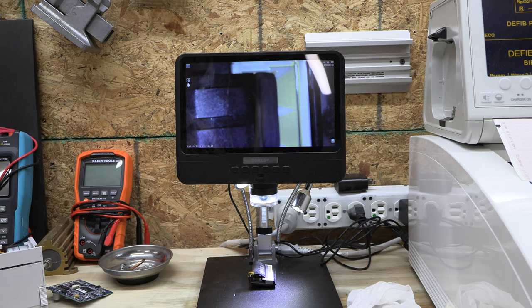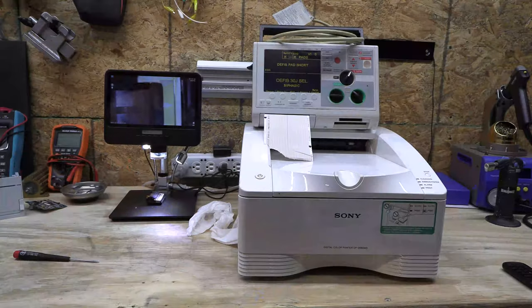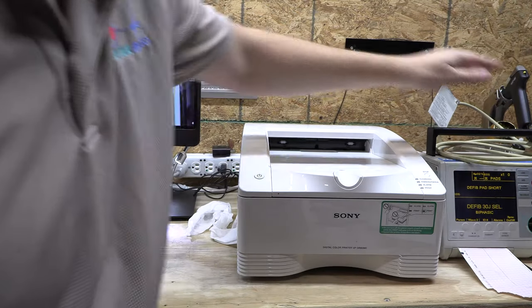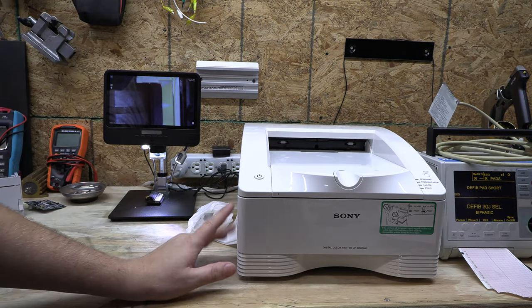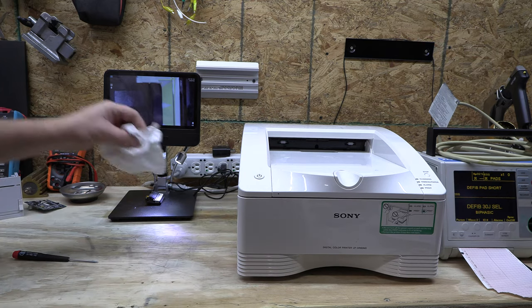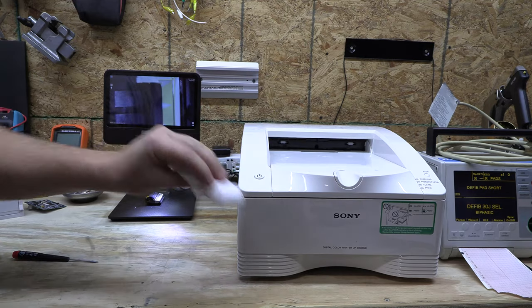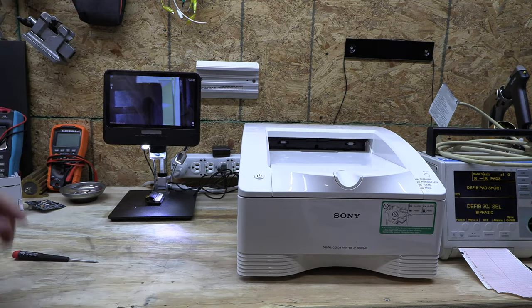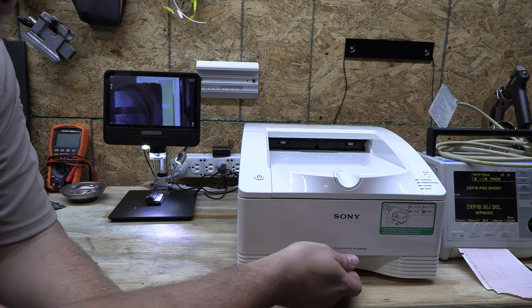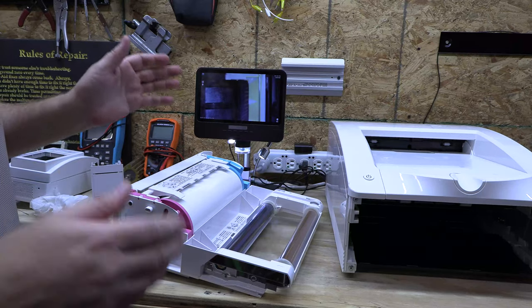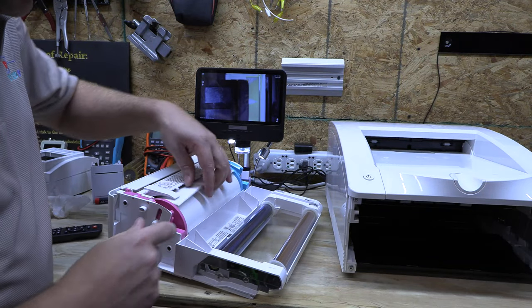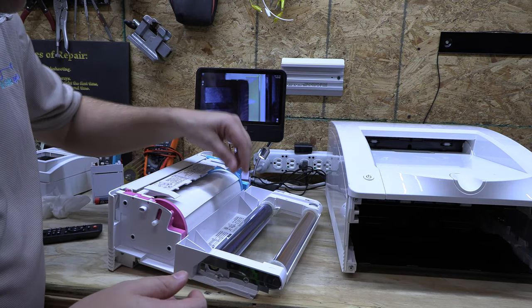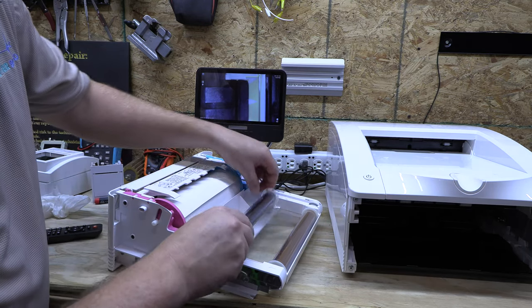That's the printhead to a direct print. That's how you clean it. That's how you maintain it. Pretty simple device, but it's not for archival storage. And for archival storage, we have another solution. We use something like this guy here. Now this is a Sony thermal transfer printer. Thermal transfer printers are considered archival quality. But they're more expensive, they're louder, and they require two consumables.